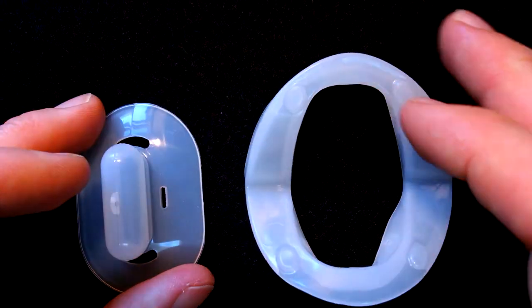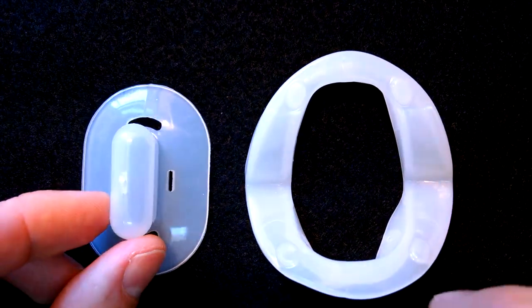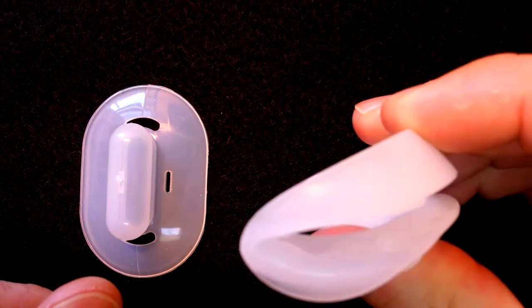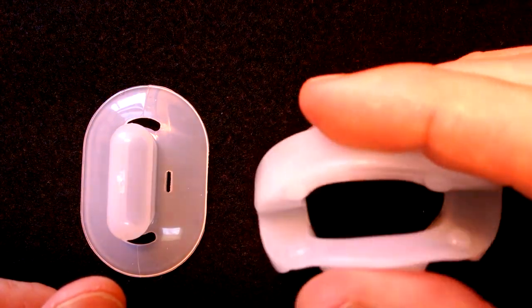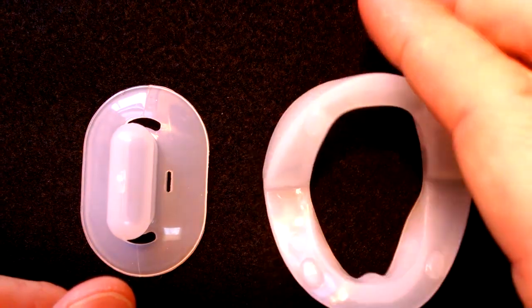Side by side here, Snorermender on the right, pacifier on the left. This is a hinged mandibular advancement device, ready to use straight out of the box, it allows you to breathe freely. And it's about $57.